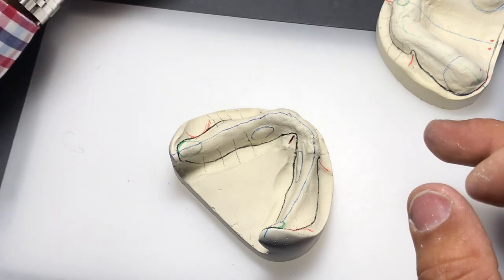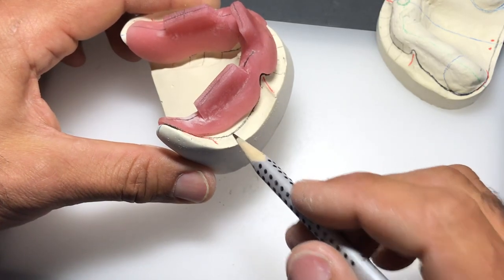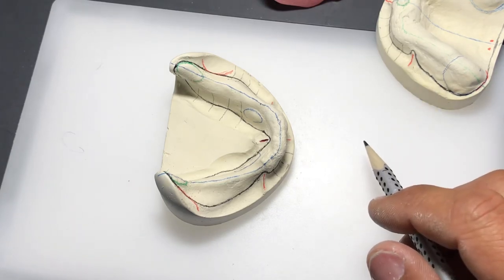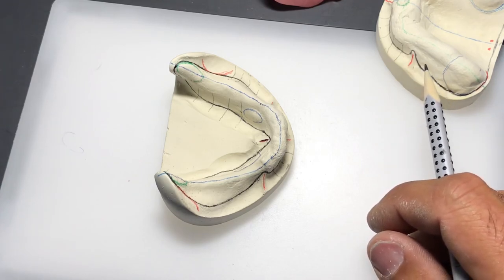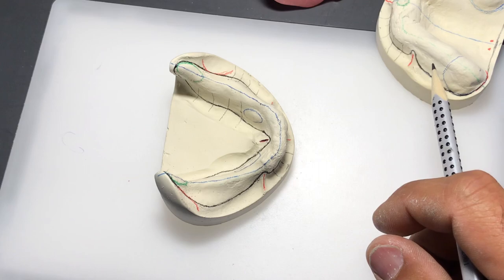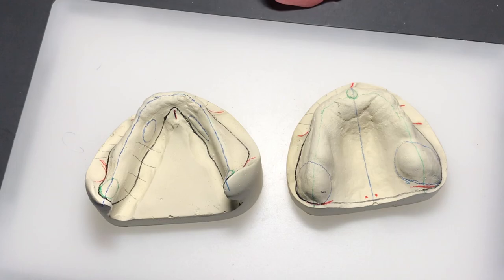If you have trouble seeing where you're going you can put in some vertical lines, but if you hold your model properly and move your pencil back and forth, you'll be at the right spot. At this stage it's not critical to get this line 100% perfect - you might be off a millimeter or two - but with experience you'll get it right. What's more important is that when we get to the custom trays, we actually finish the custom tray to that line. I've made trays before - let's see how this matches. Any questions on outlining the landmarks required for upper and lower custom trays?